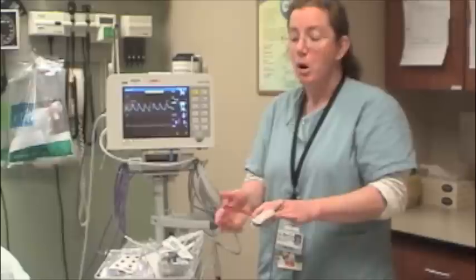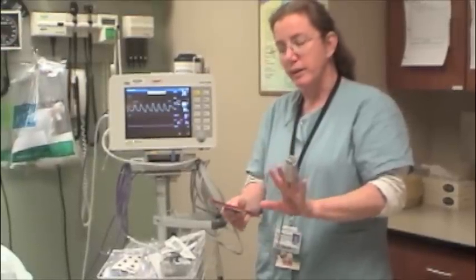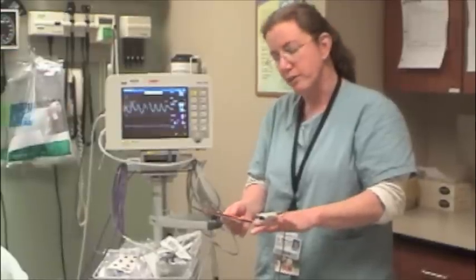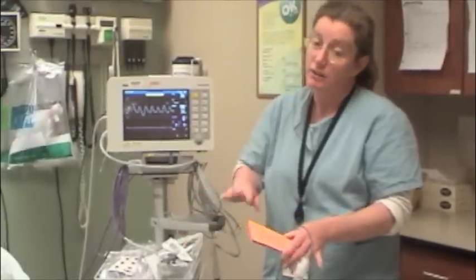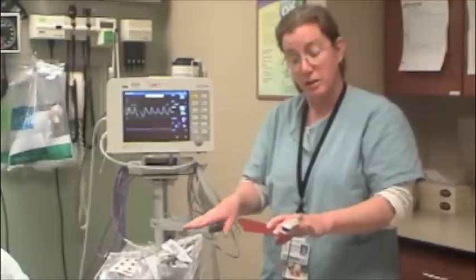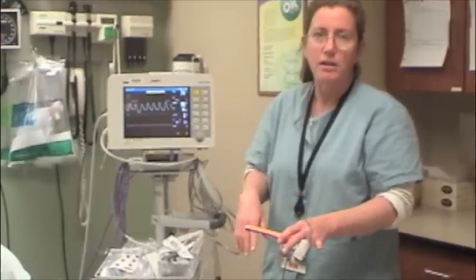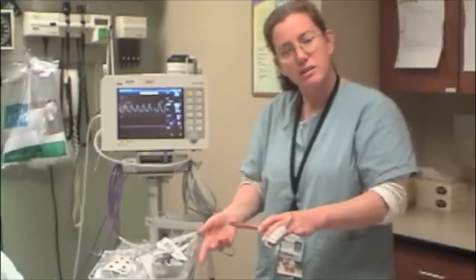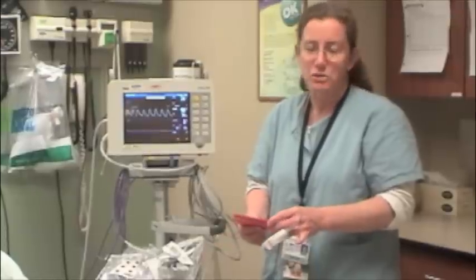When a person hypoventilates, their CO2 levels will rise, so the end-tidal CO2 will be greater than 45. Possible causes include overdose — either accidental or recreational — alcohol, sedation, postictal state in a seizing patient, a tiring congestive heart failure patient, head trauma, or stroke.